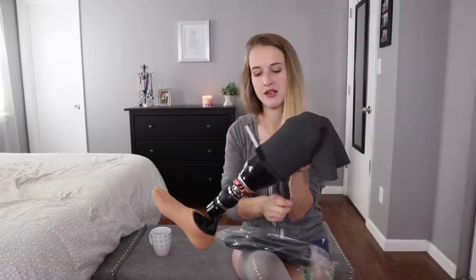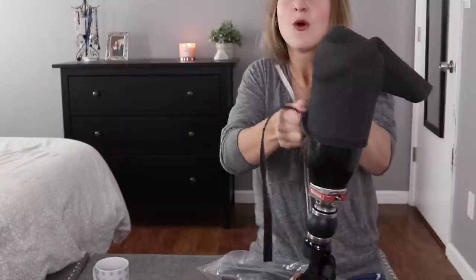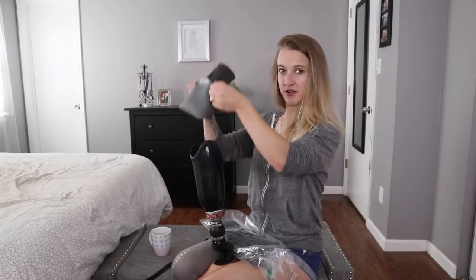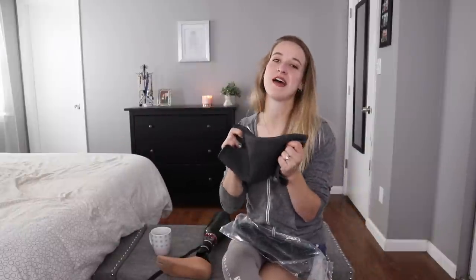Now let us return to our normally scheduled programming. By the way, this right here is the best thing ever invented — a simple strip of velcro — but it makes it so that when I put it on right here, my pants don't roll this up as I try to put them on. Thank you, creators of velcro. Okay, so taking my sleeve off — oh my god, that almost hit my coffee — shake the dog hair out. Taking my sleeve off is not that big of a problem; you just pull it off, you roll it up, no big deal.